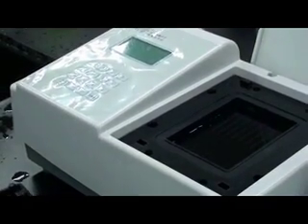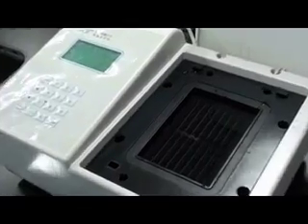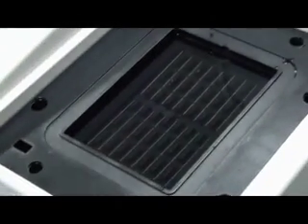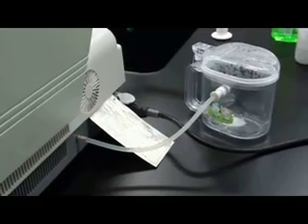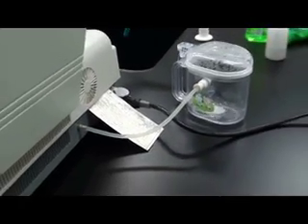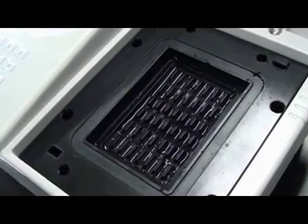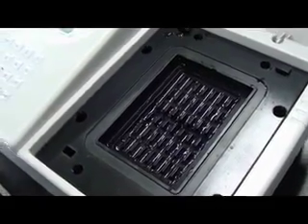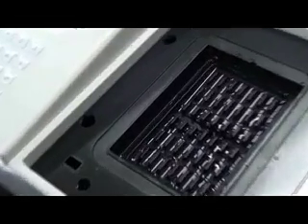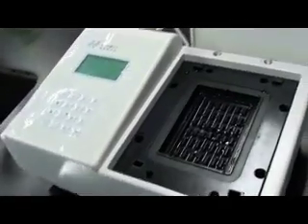Once the pump is turned on, it will pump out all the liquid and solution from the reaction chamber into the waste bucket through a transparent plastic tube as illustrated. Once all the liquid has been pumped out of the reaction chamber, we can now start the setup of the other components.